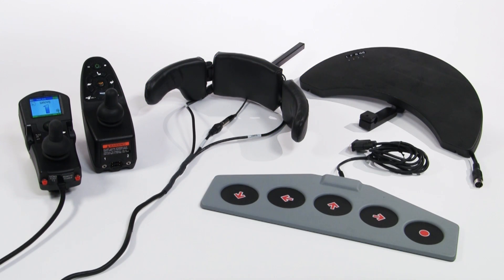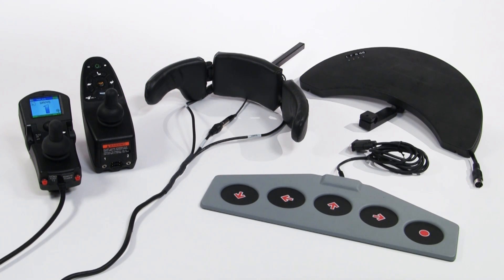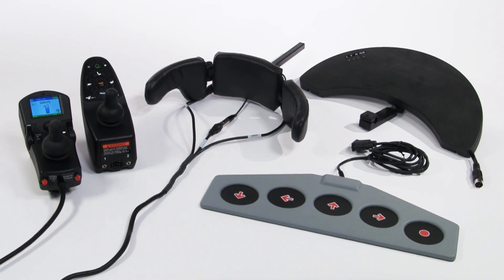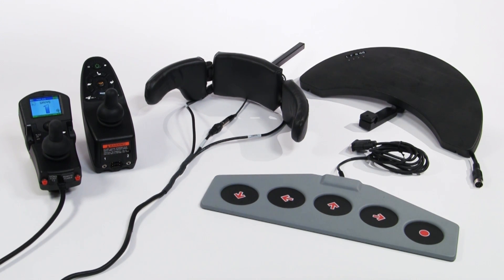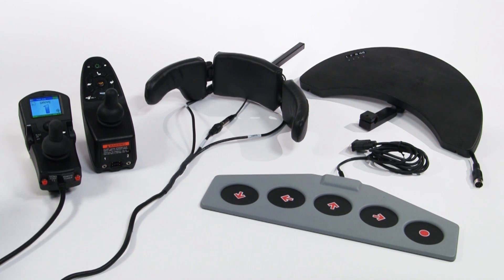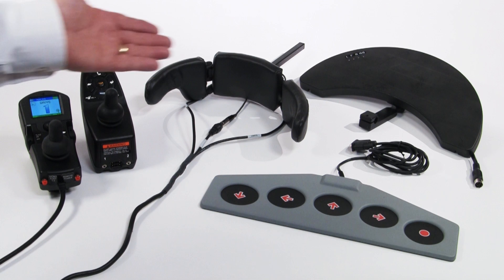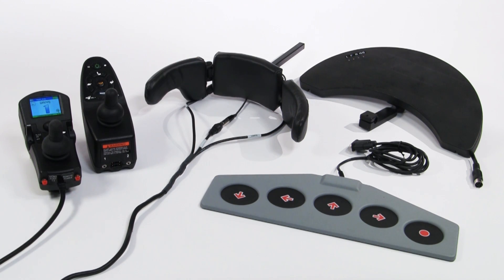All power wheelchair driver controls, regardless of the manufacturer, fall into one of two categories: proportional, also called analog, or non-proportional, also called digital.